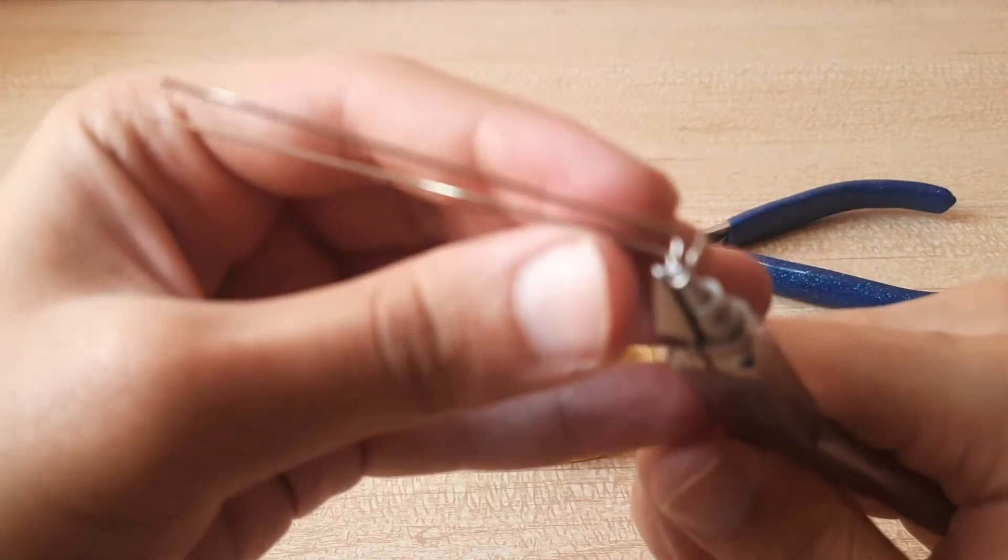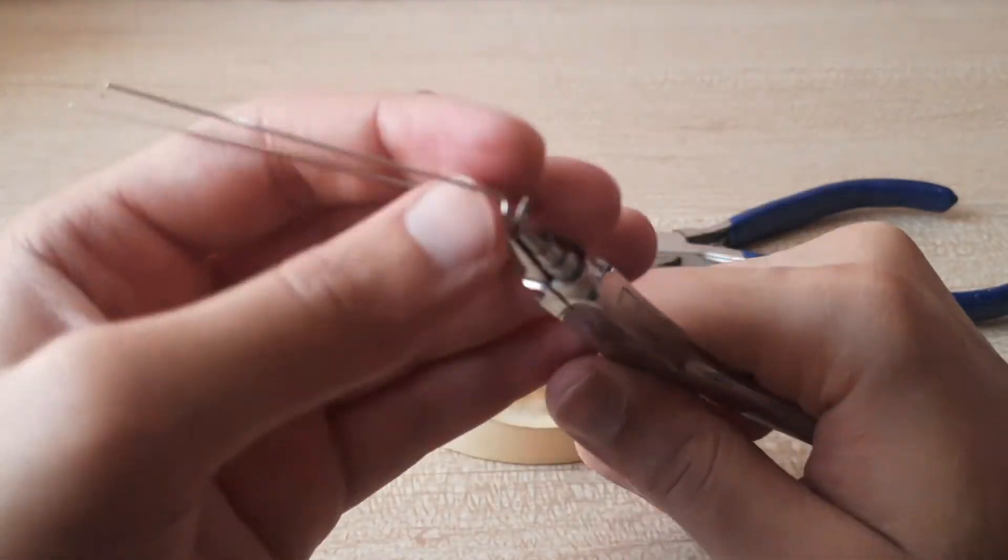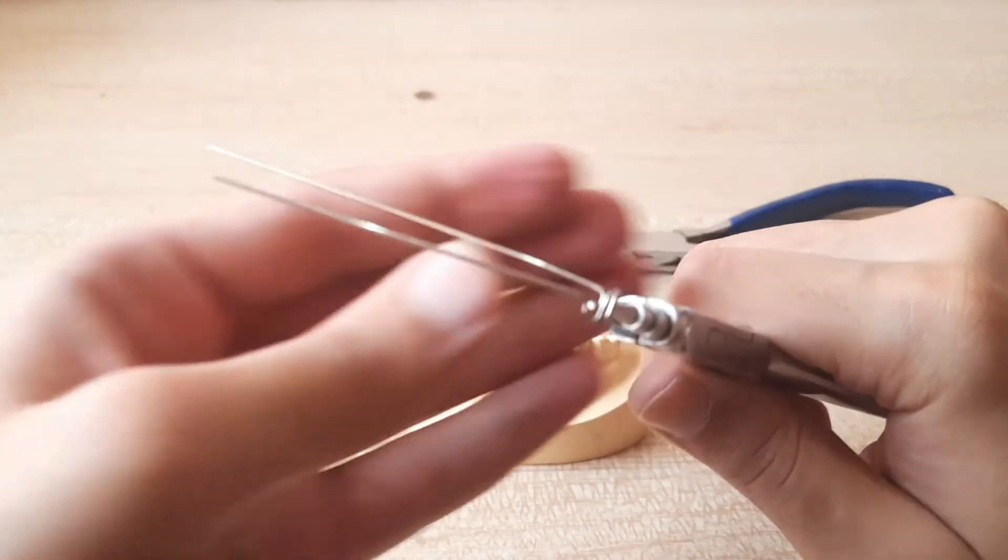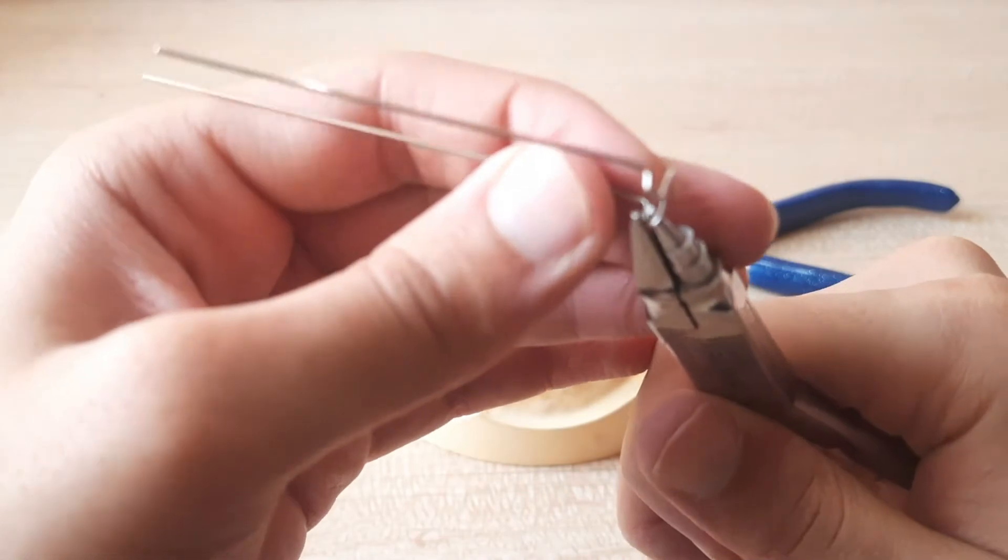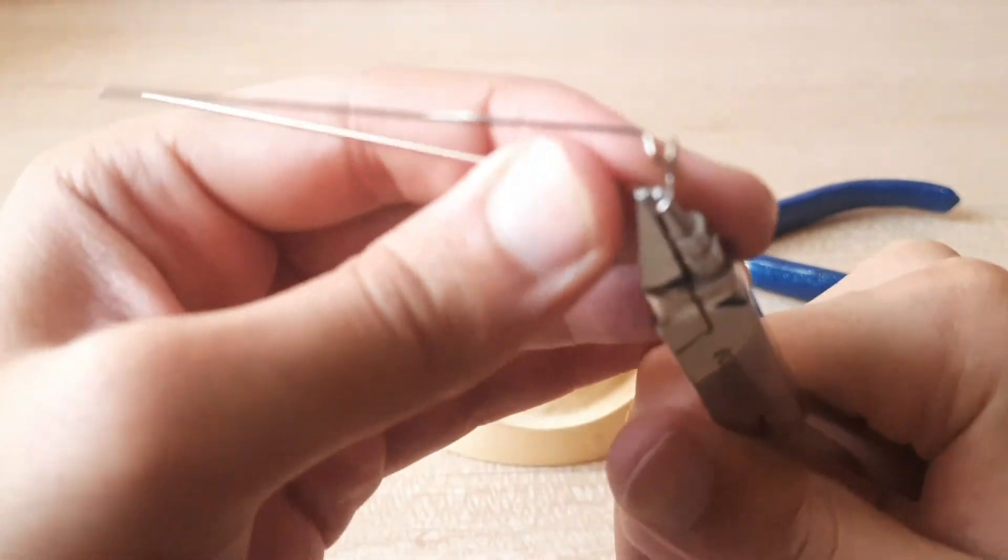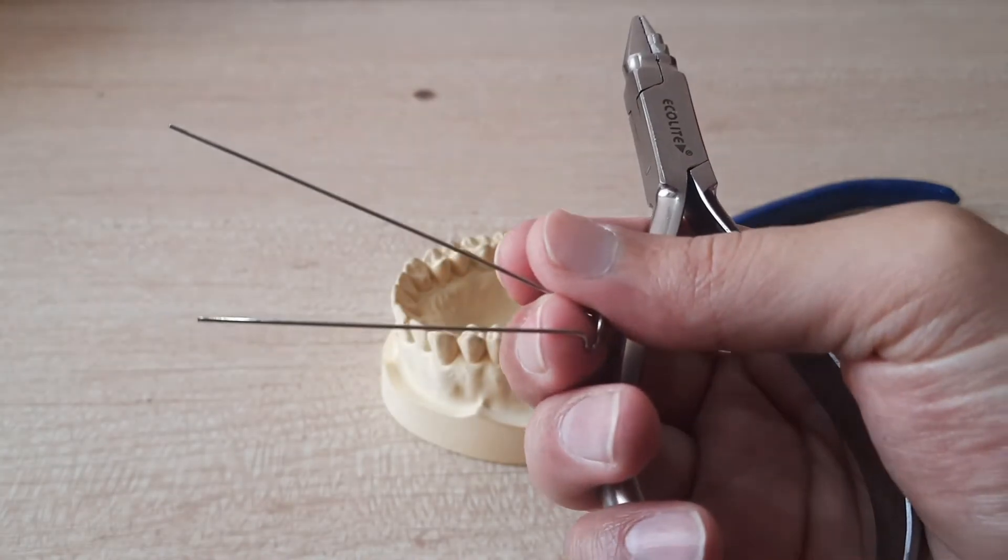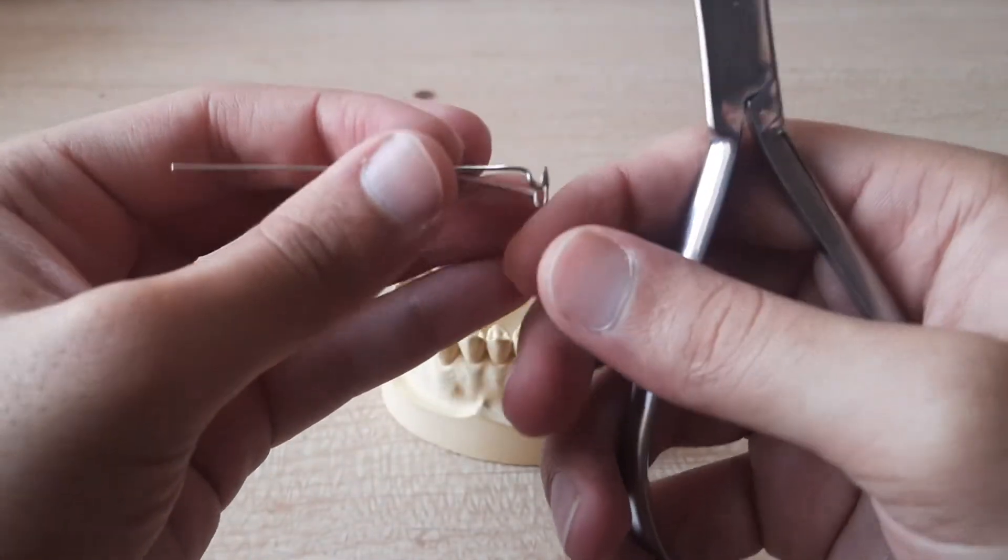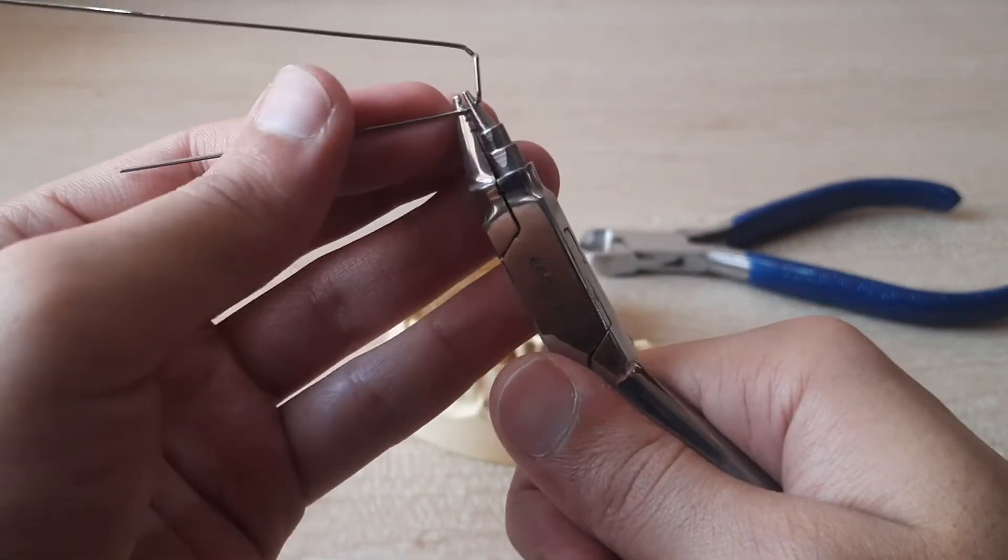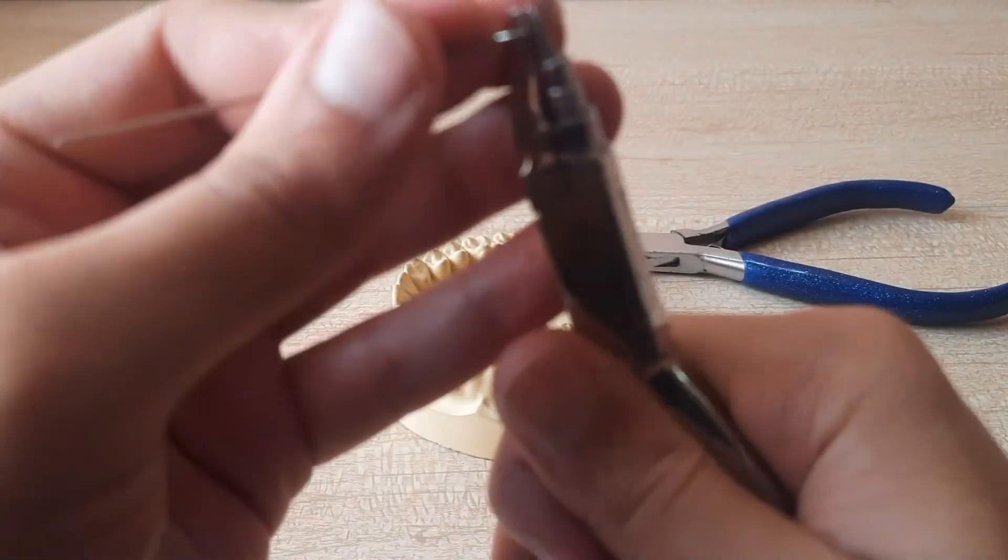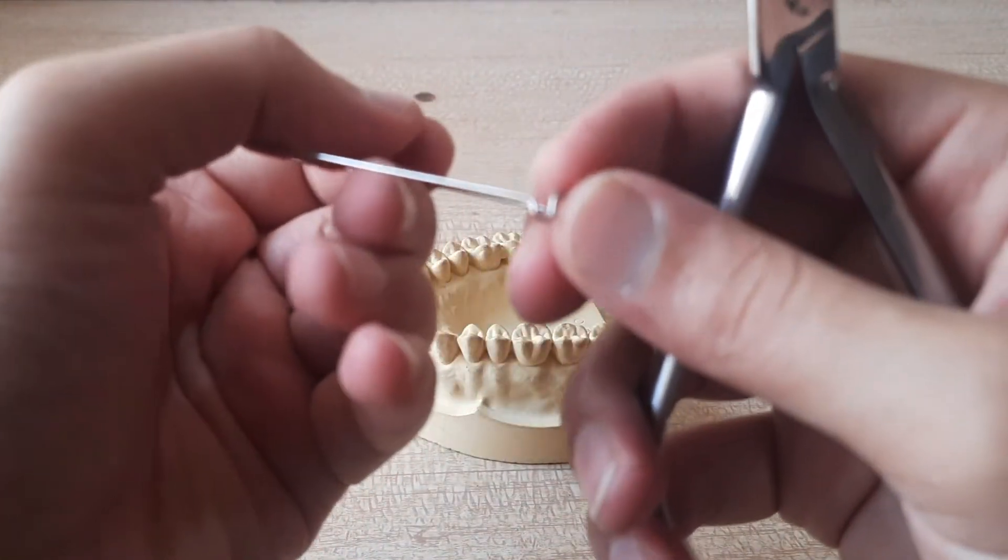So to open up the bends you have to hold it in the way how you gave the million dollar bend and just have to open it. Just have to open it up a little bit. Yeah fine so this is the thing.